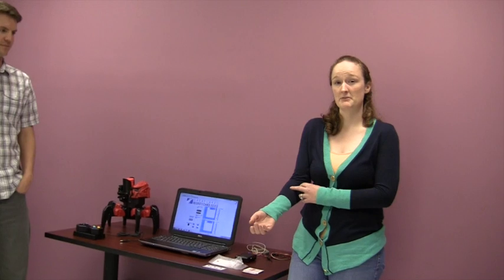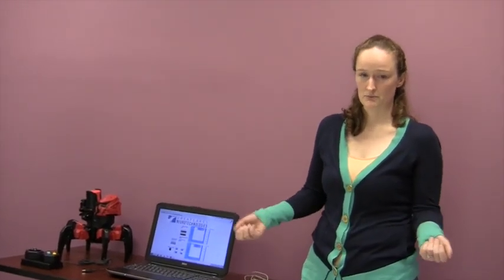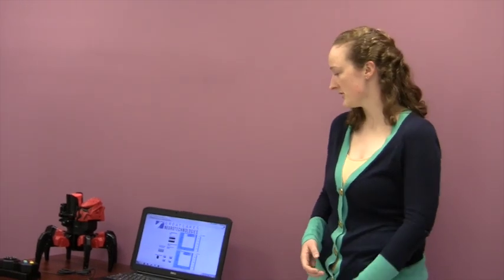As Eric mentioned, the BioRadio is used to capture biological signals. Electrodes are placed across the muscle body to detect when an individual is intending to move their muscles, that electrical potential.